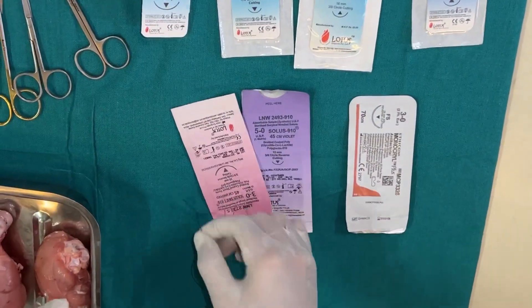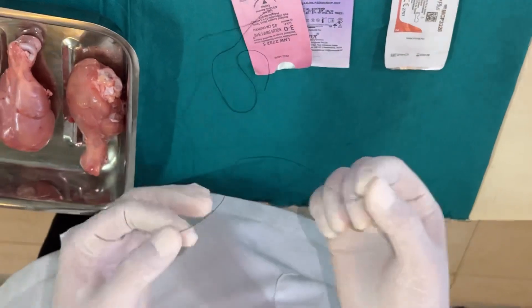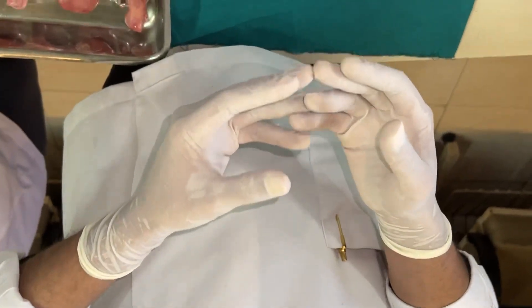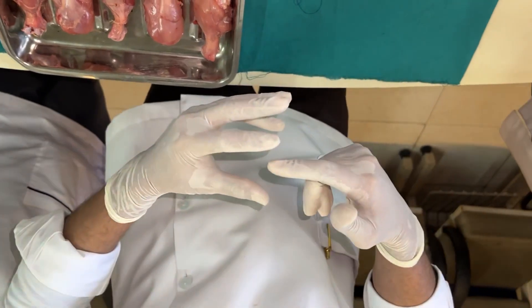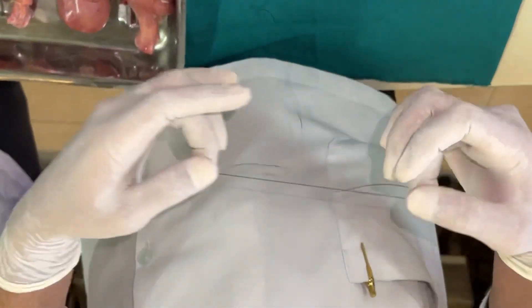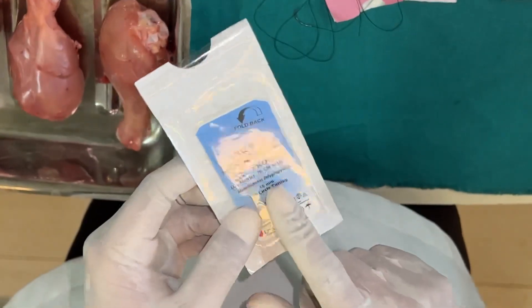Non-resorbable and resorbable sutures are both divided into natural and synthetic types. Silk is a natural non-resorbable suture. Its advantages are that it is cheap and easily available. Its disadvantage is that it is braided — multiple threads twisted together — creating a wicking effect, where microorganisms penetrate the micro-spaces between threads into deeper wound areas.